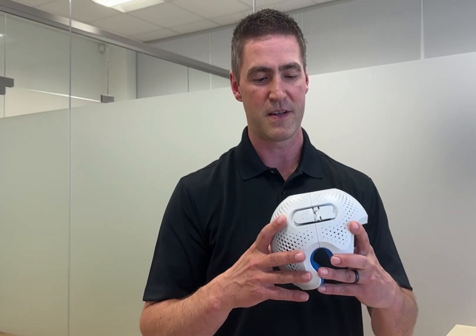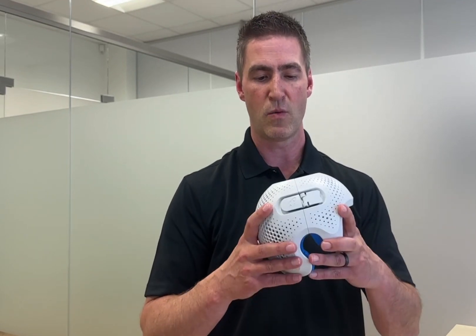Hello, my name is Josh Alstrup and today we're going to introduce to you the 2-in-1 version of the Talley cranial remolding helmet. The 2-in-1 version allows for more growth, greater stabilization, and reduced overall adjustment appointments.